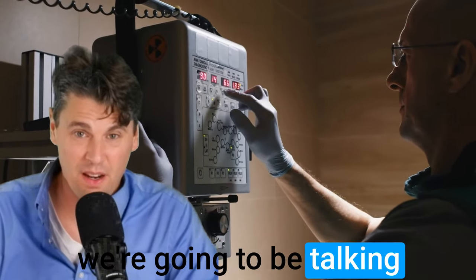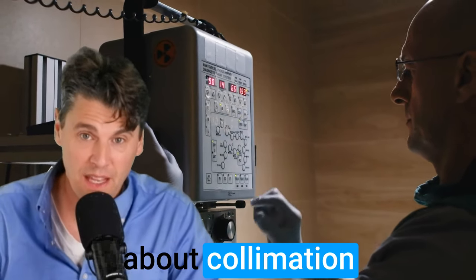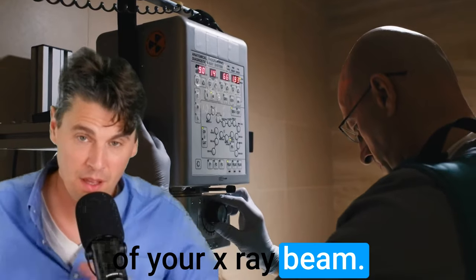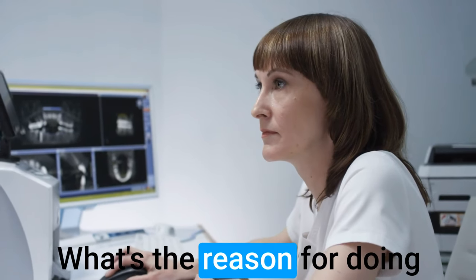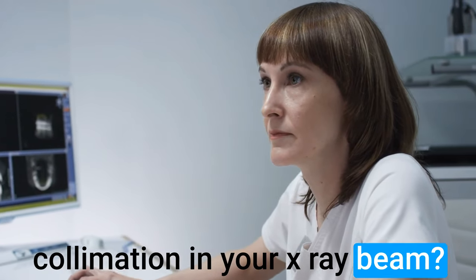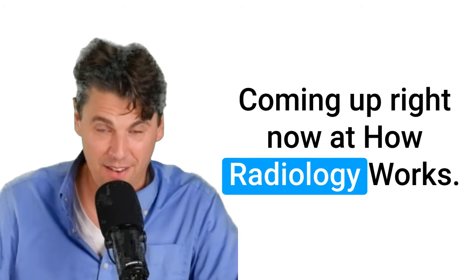Alright, today we're going to be talking about collimation of your x-ray beam. So how does the actual collimator work? What's the reason for doing collimation in your x-ray beam? Coming up right now at How Radiology Works.